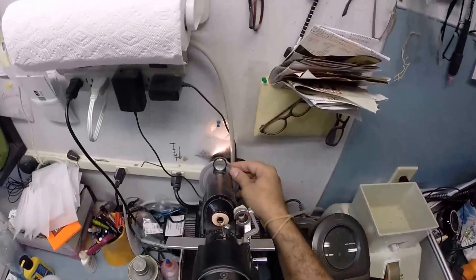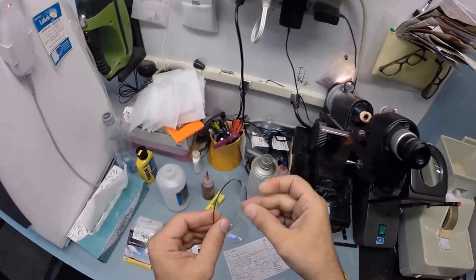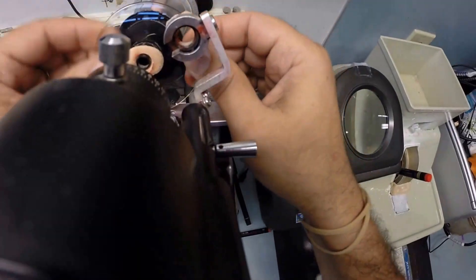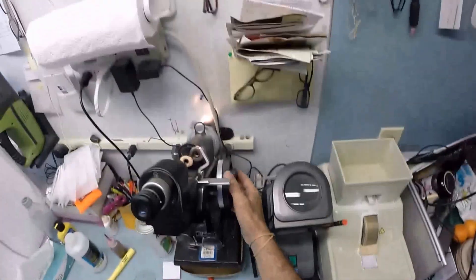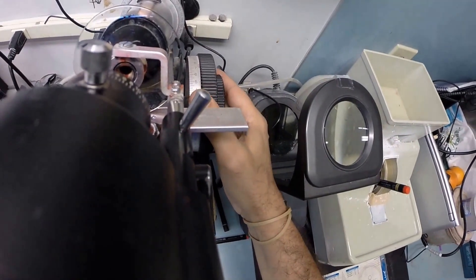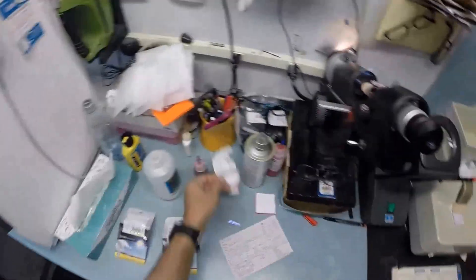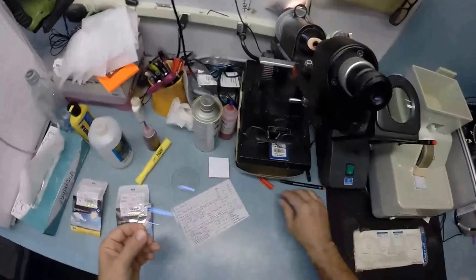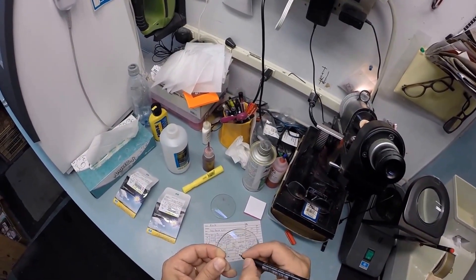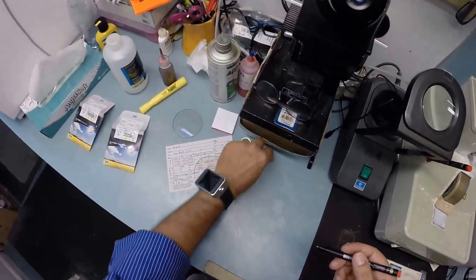Minus 50, minus 1 at 55. Take your lens out of the protective sleeve, pull the plastic laminate off the front of your lens. Put the lens in, rotate it until the sphere of power comes in clearly. Let's put the power on minus 50 so everything comes in clearly. Find the optical center of your lens, check your astigmatism correction. One, two, and three. And this is going to be L for not right - and if you missed any of that, let me recap. That never gets old. I know it's a bad joke, but you'll be telling it tomorrow.